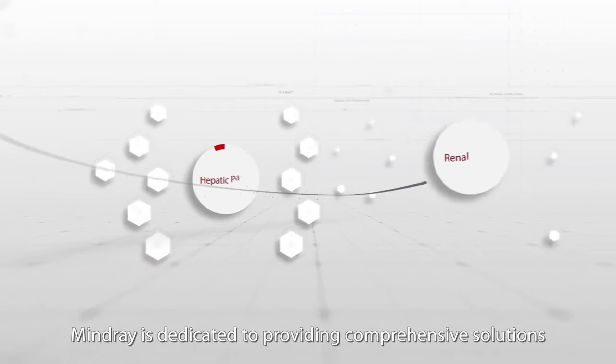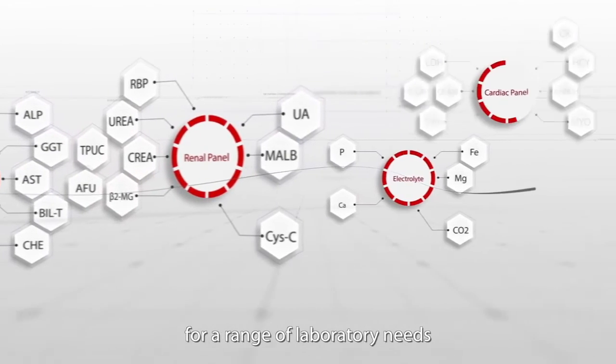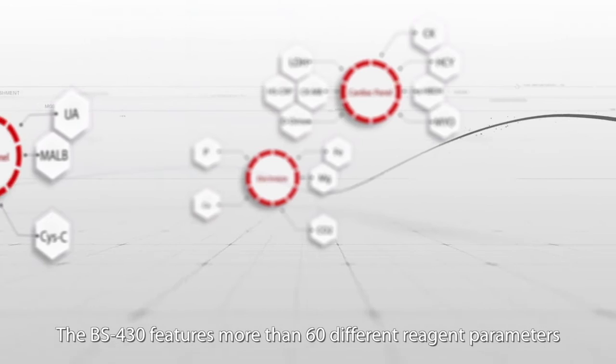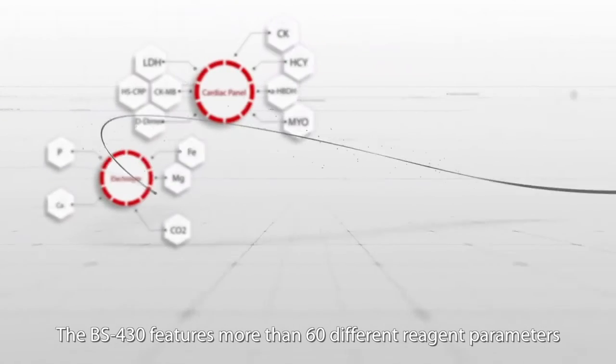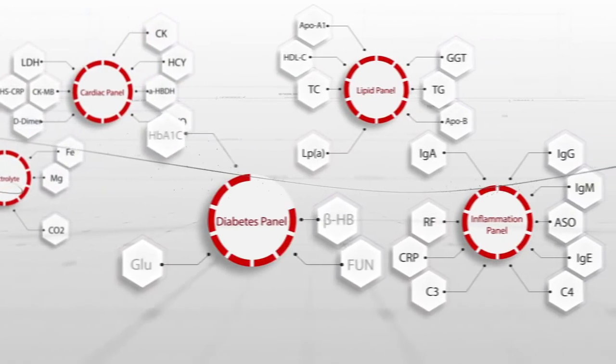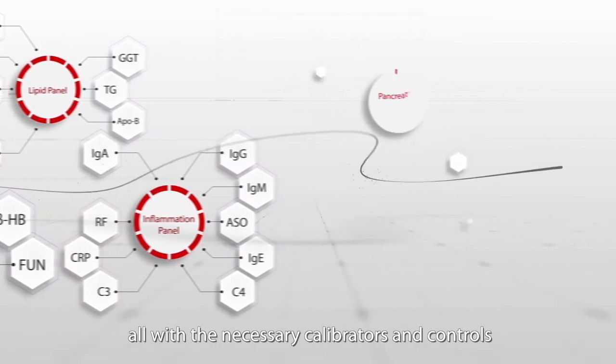Mindray is dedicated to providing comprehensive solutions for a range of laboratory needs. The BS430 features more than 60 different reagent parameters, all with the necessary calibrators and controls.